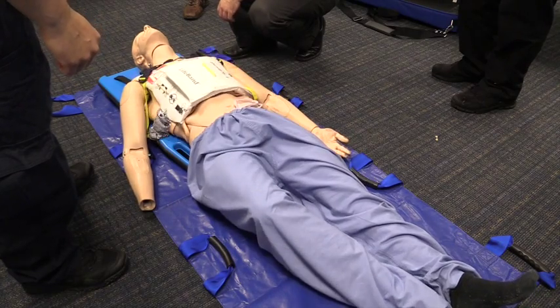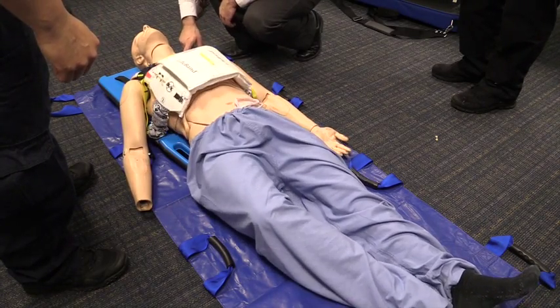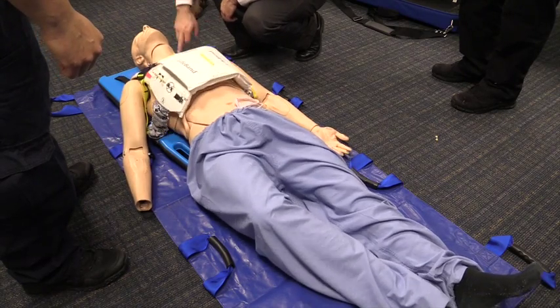It's kind of what this band does. Not only does it cover the entire surface of the thorax, but it also compresses and squeezes, almost mimicking what the heart does.